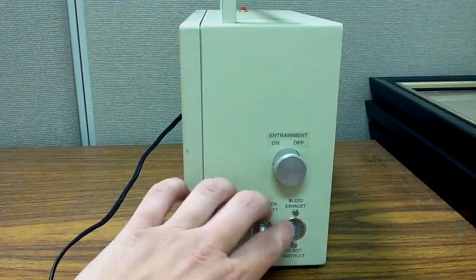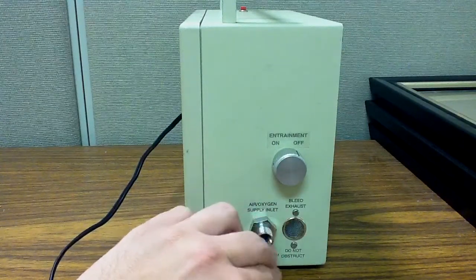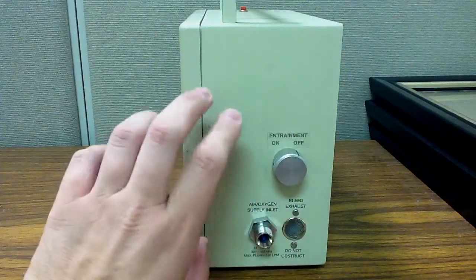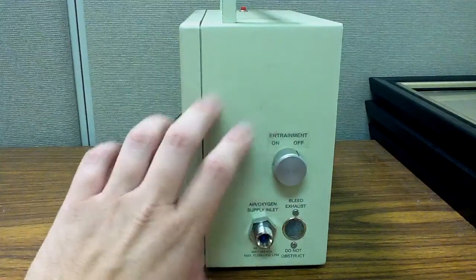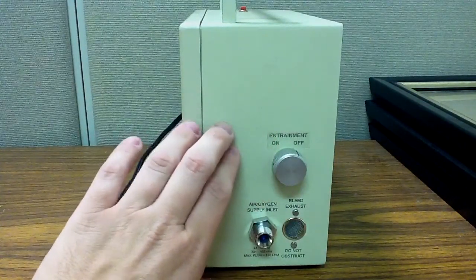That is something we need to be very careful about with this ventilator: I always have a compressed gas source. Otherwise, this ventilator will not work. It will not ventilate on room air.